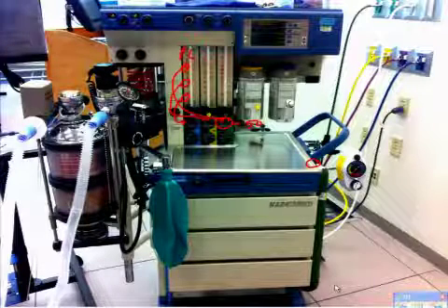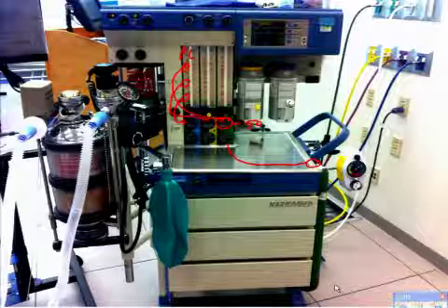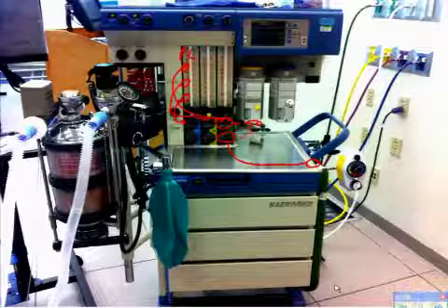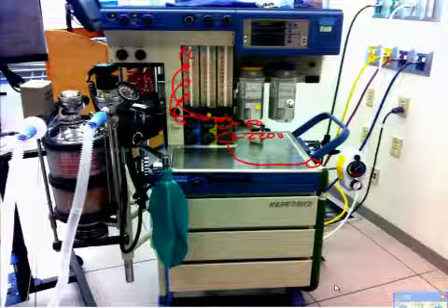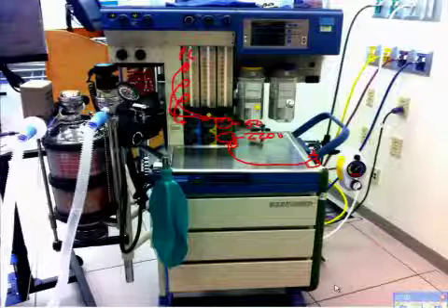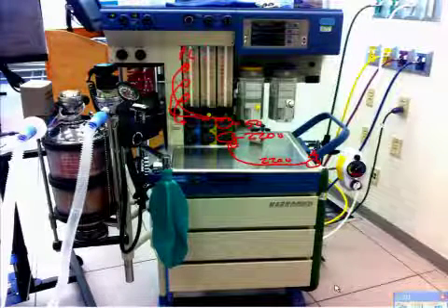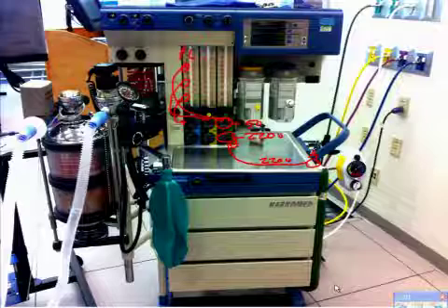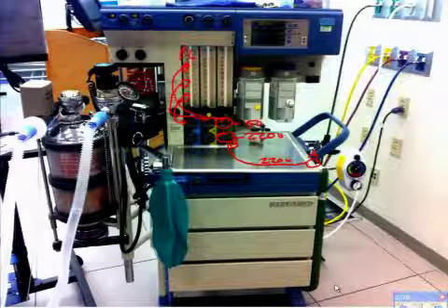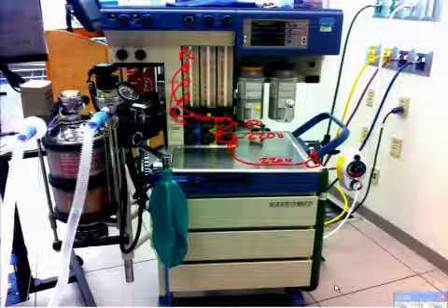You've got an O2 cylinder pipe that's going to come around. It's going to run directly up here. Here, it's going to read 2200. So there's nothing in between point A and point B. Okay? Can't be because it's reading 2200. But at this point, immediately after this, you're going to have your first pressure reduction valve. All right? So you're going to have a pressure reduction valve just on the back side of this.